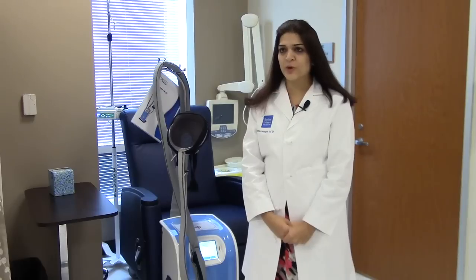This is our scalp cooling device. This was used in our clinical trial for patients with stage one and two breast cancer to prevent hair loss from chemotherapy.